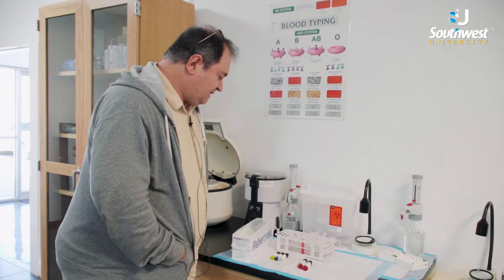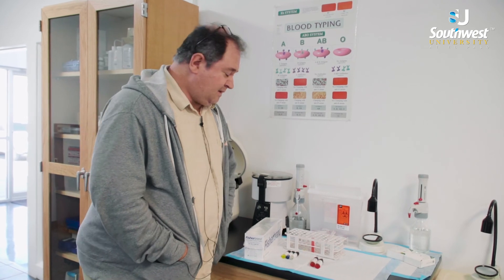Blood bank is one of the few sections of the laboratory where we still use our hands and do testing with our eyes rather than instruments, although many of the major hospitals now have instruments also. The test tube method is still the fastest and most accurate way to do blood bank. Thank you.